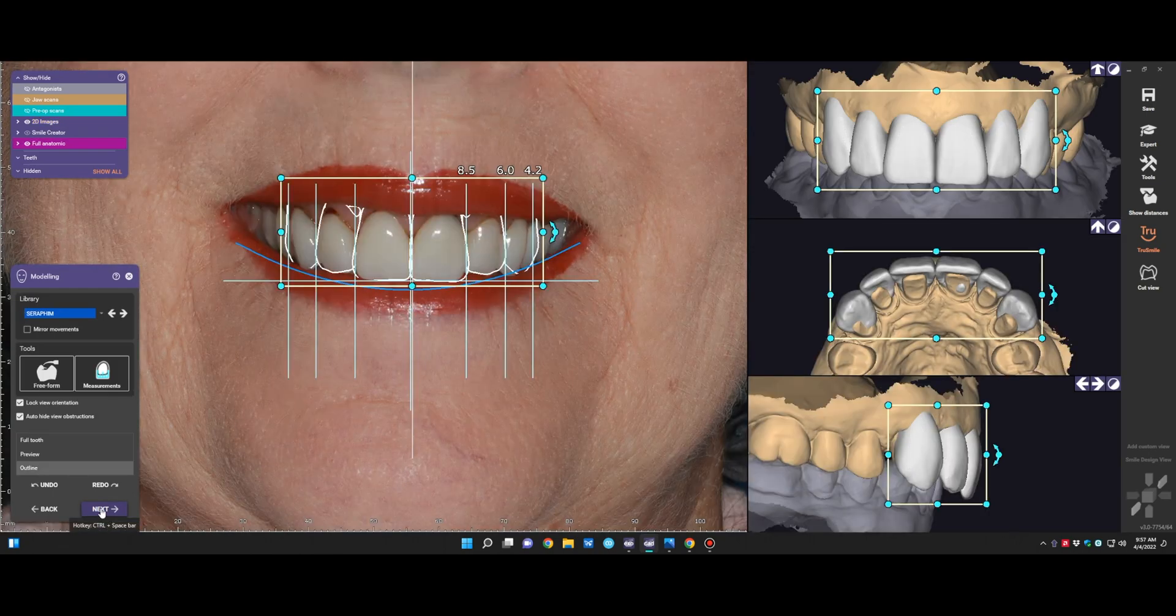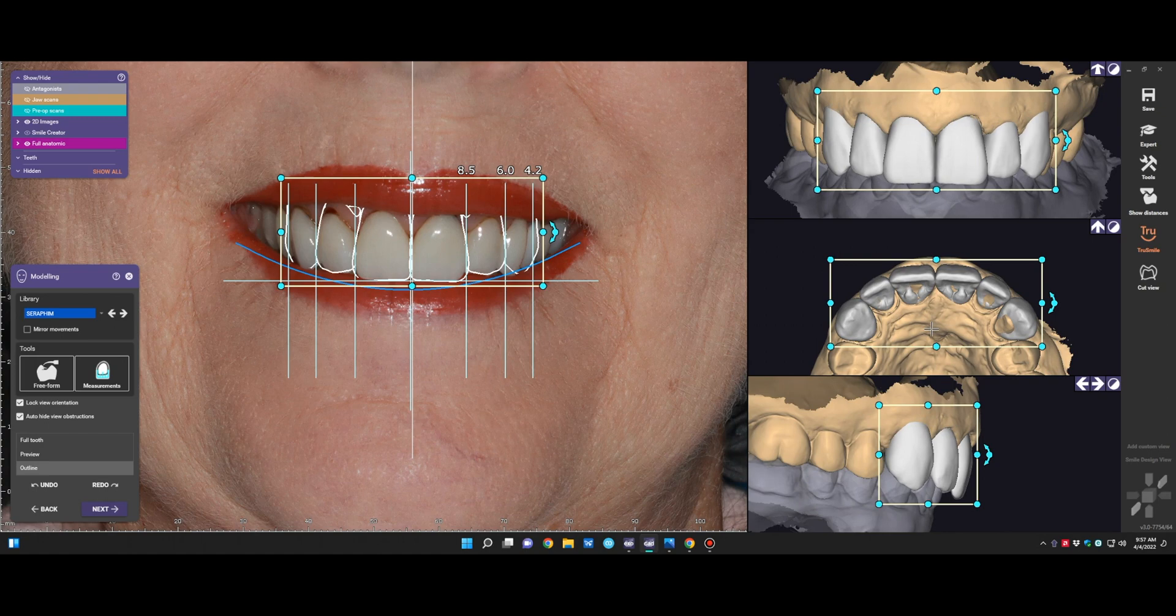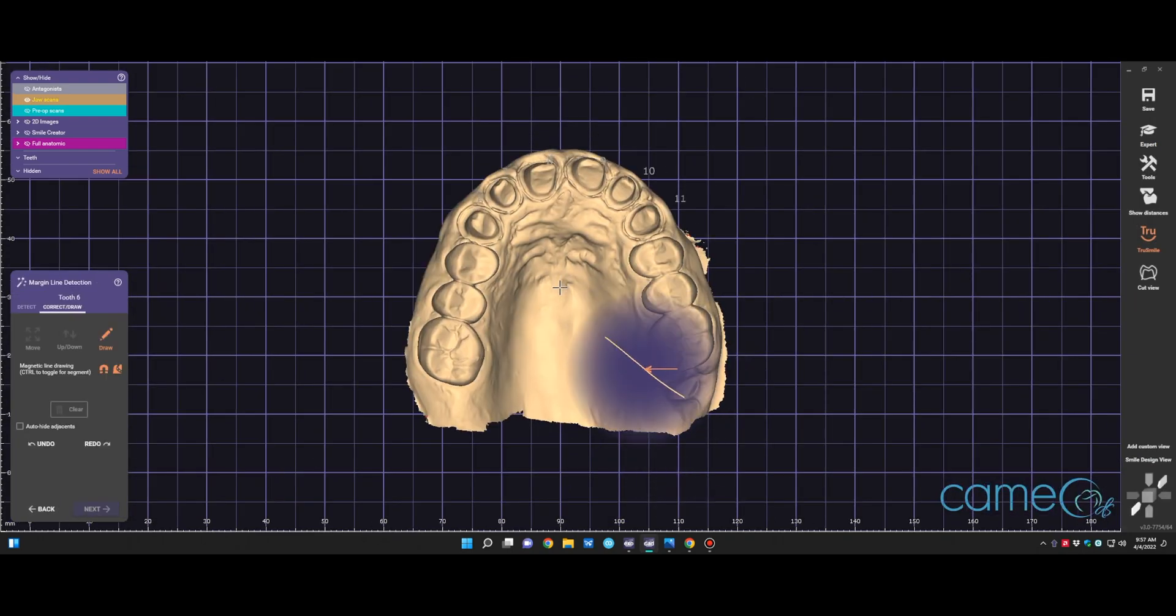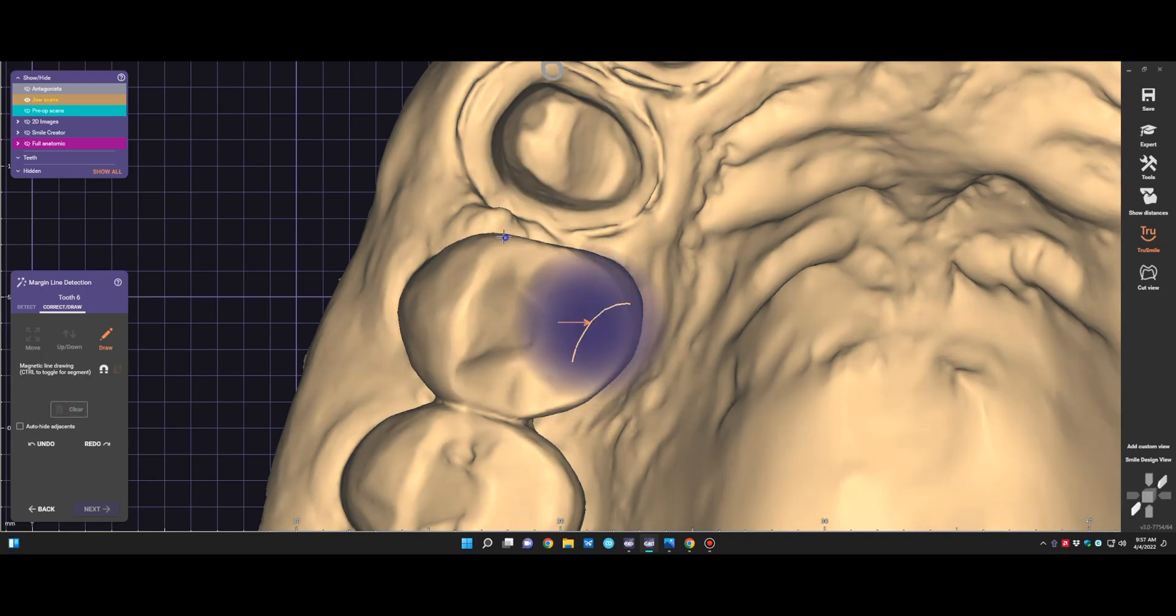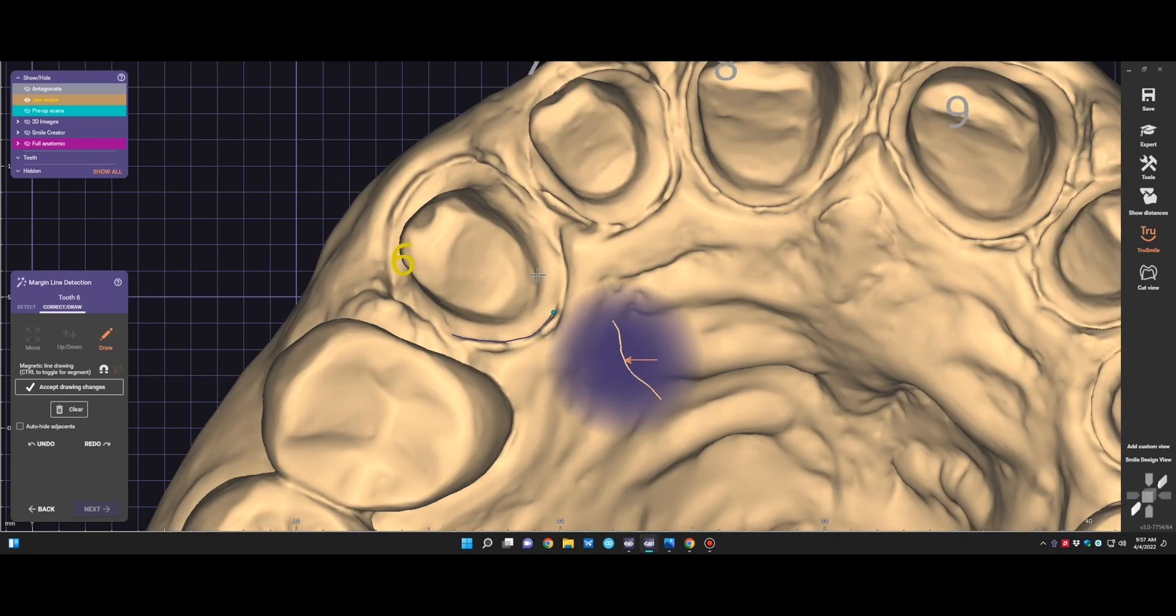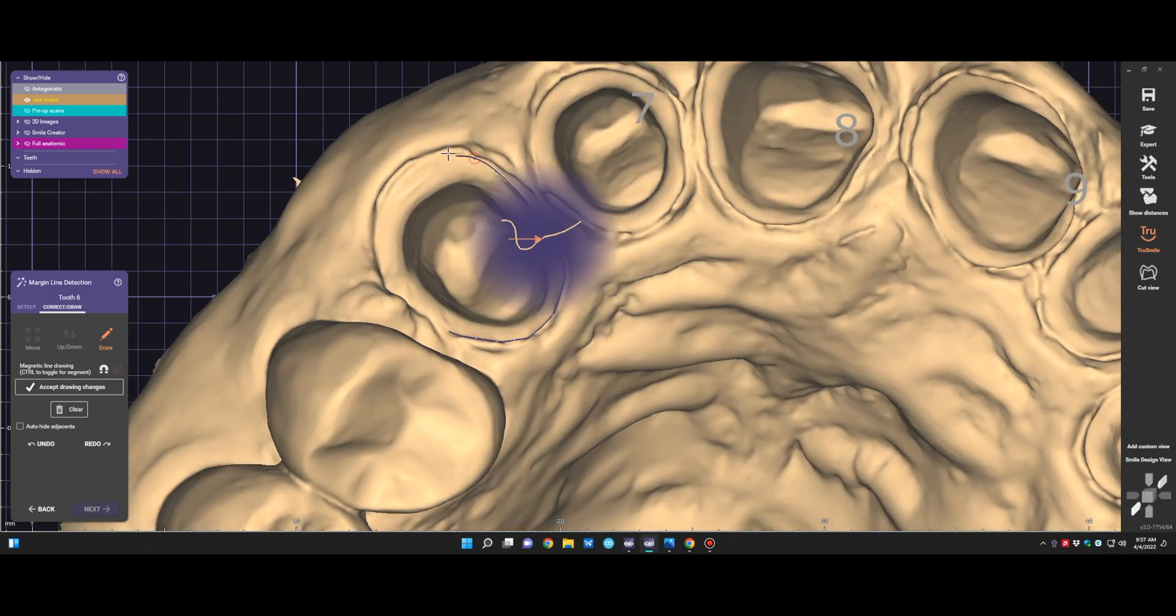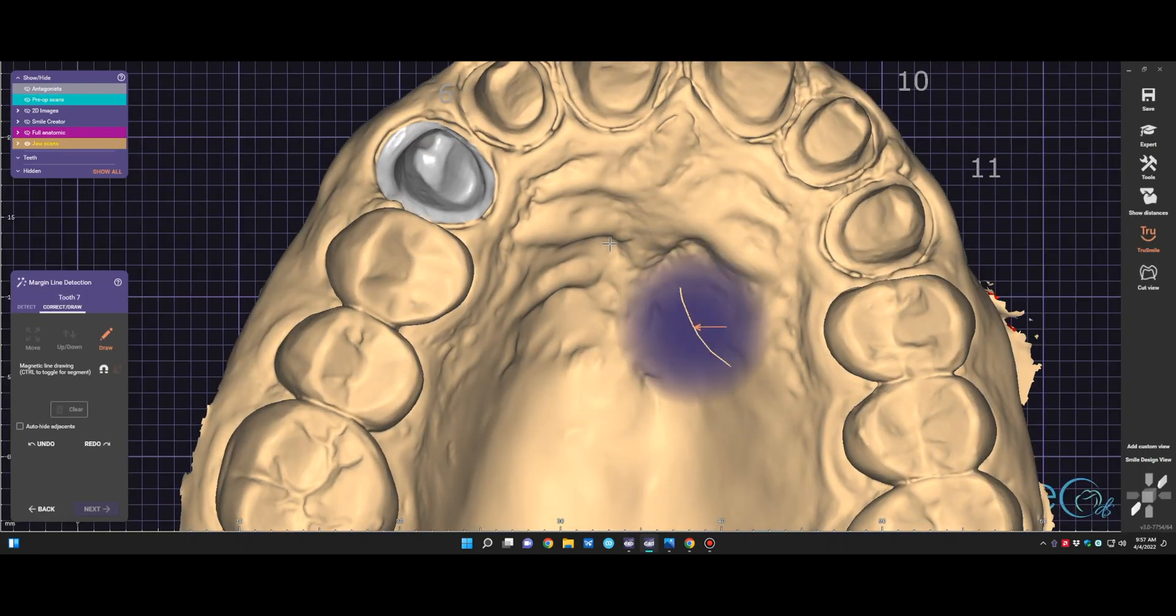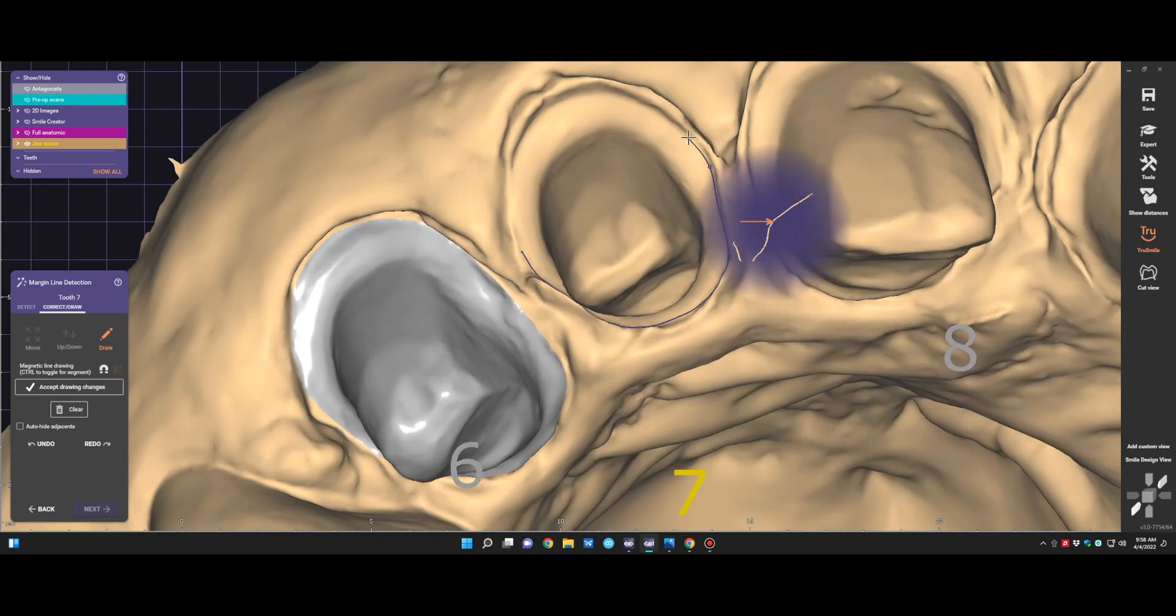So once you get the teeth in the basic position, you can still move them around a little bit here in that window. But once they fit into that basic position, then we will go and move on. You click next, we can pick a color of the tooth. And then at this point, it's asking us to identify the margins of the tooth preparations by turning off that magnet. You can just click it, like trace it, click by click. Again, these are not as ideal as if we're doing a final impression. So we're just getting this close because milled prototypes always fit better than chair side prototypes. But don't spend tons of time trying to get it just ideal, especially when the impression isn't as ideal as possible. So go through each one, outline them, and then it'll move on to the next step.